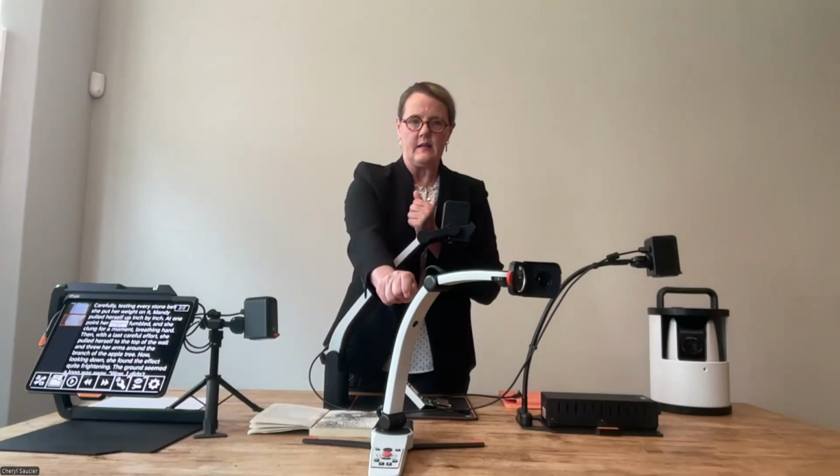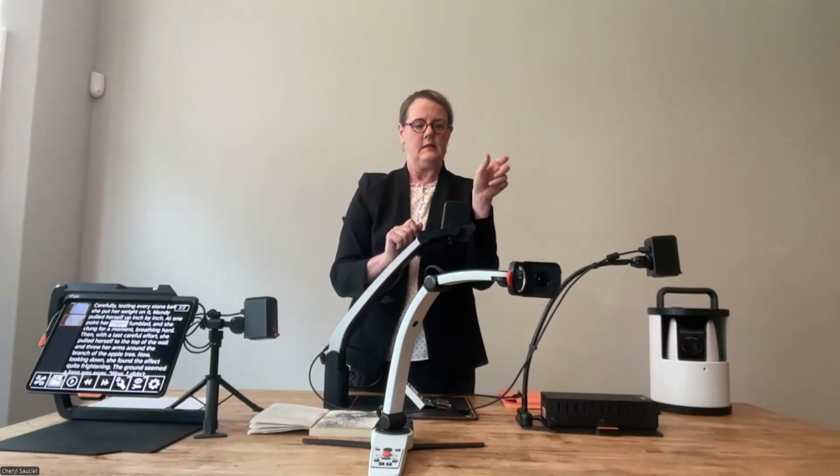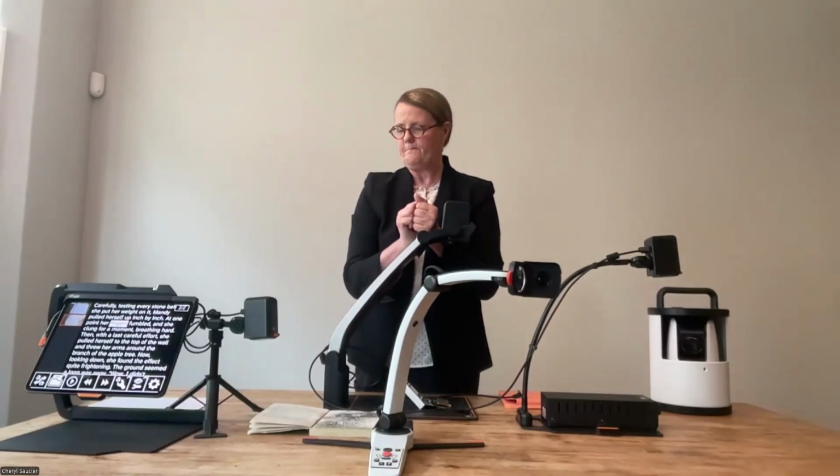She can then disconnect her Magnilink S from her iPad in the kitchen, where she's finished her recipe reading and her meal prep, and take that upstairs to her iMac computer, connect it, and then use the software to read her bills and her statements. She can drag and drop PDF documents into our software and use it that way. So this truly is for people who need multiple platforms and multiple environments. This is a great device for that.